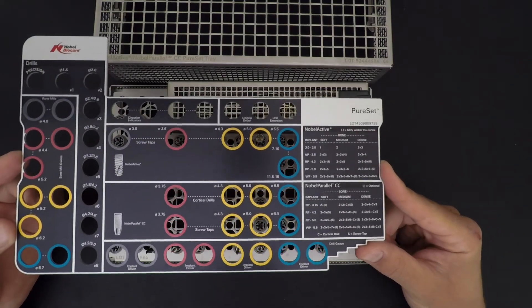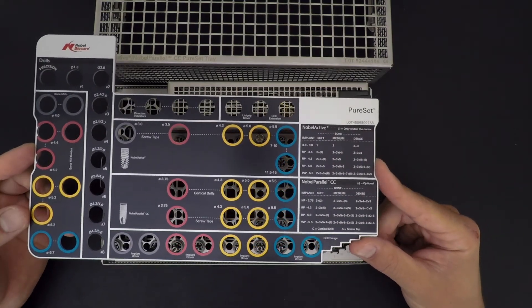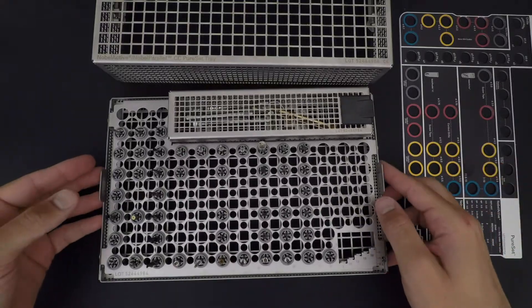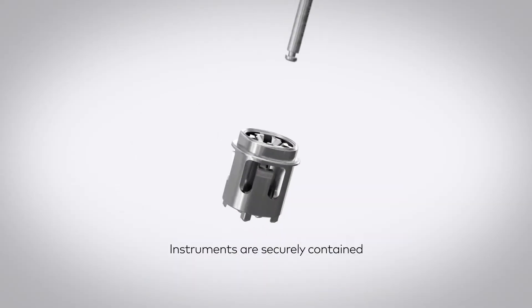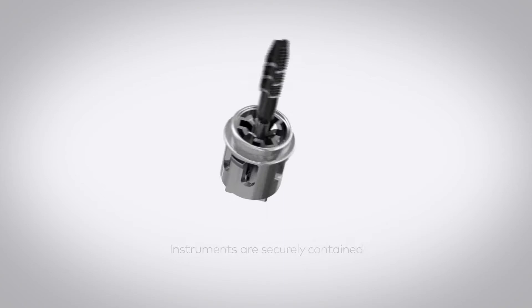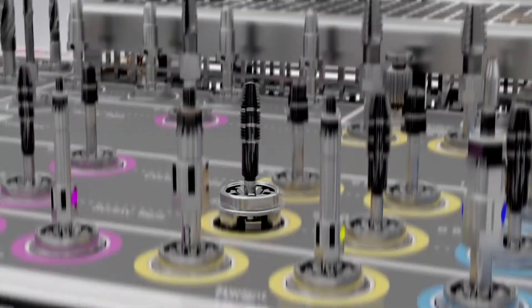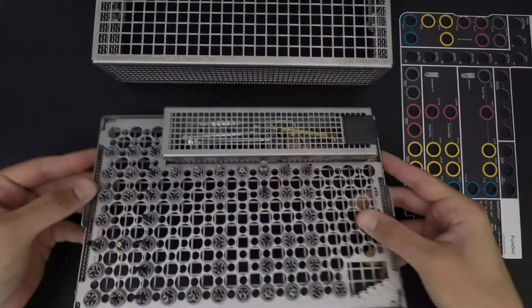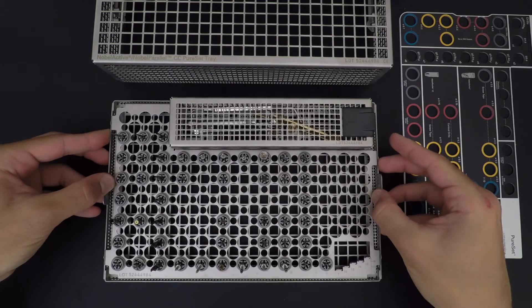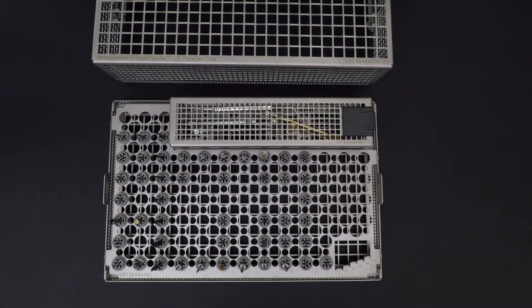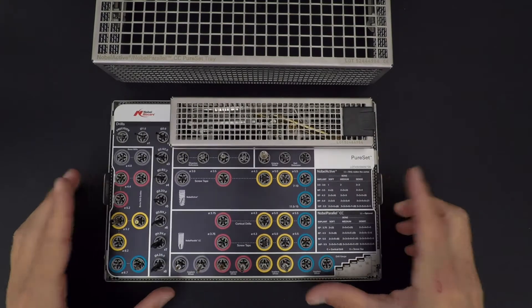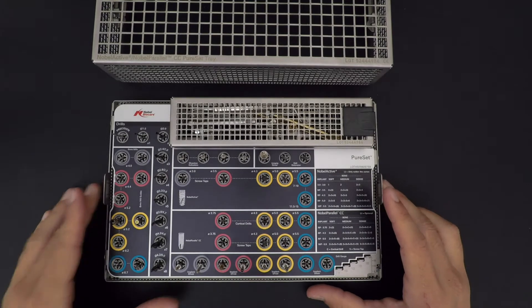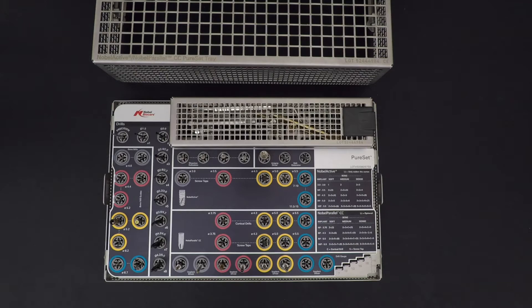The good thing about this tray is it's been designed to make sure that if anything happens, nothing will fall - it's well attached. Once it's sliding, it won't move. Really handy if like me, you're clumsy. The first thing I want to look at in this Pure Set is your step drills.